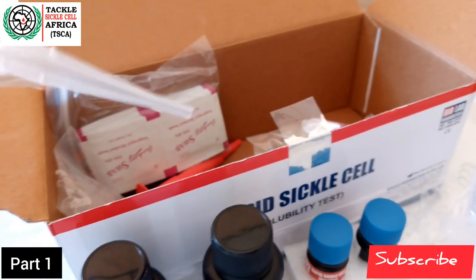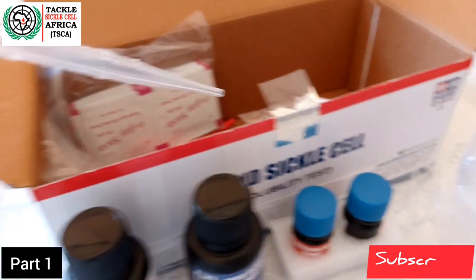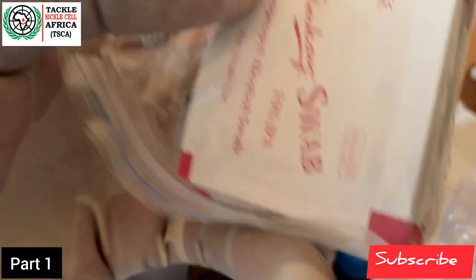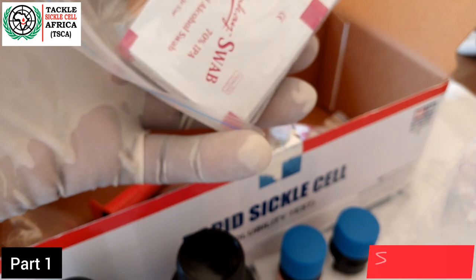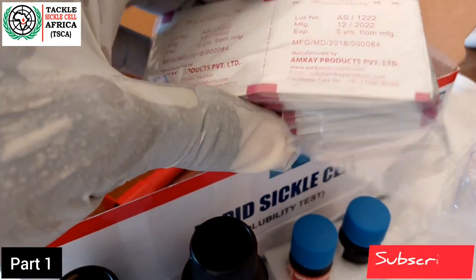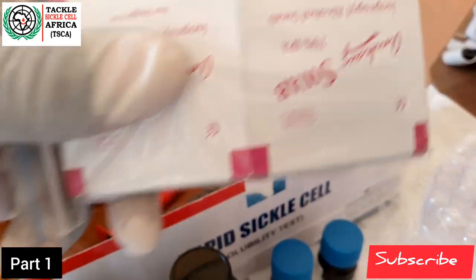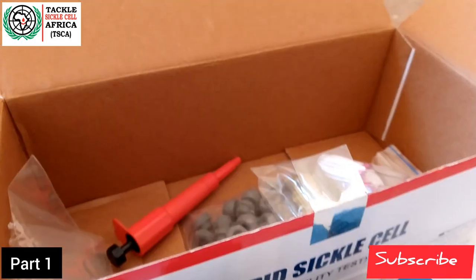We also have the pipette, which is used for drawing solutions from one container to another. Then we have the swabs — the swabs are for cleaning the site where you are going to prick to take the drop of blood. There are also enough swabs for all 50 people so that you do not have any shortages.